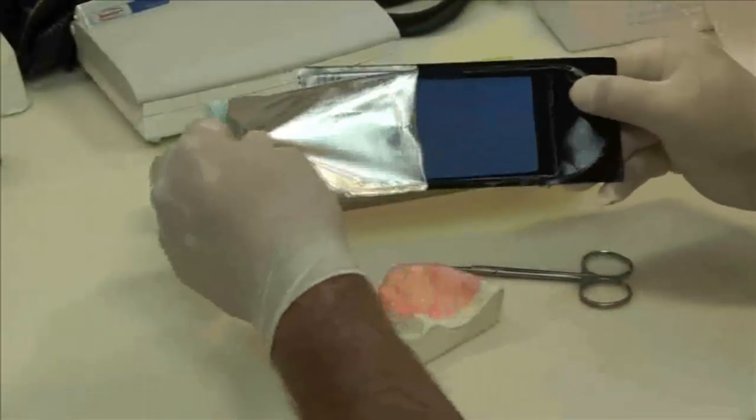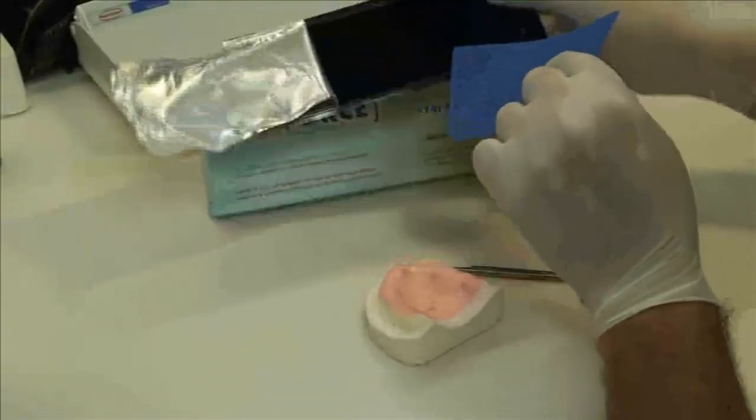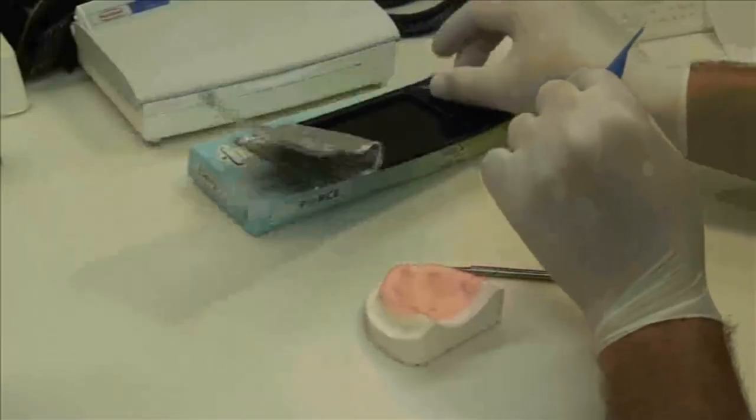Remove the mesh from the package and using standard scissors, cut the quantity needed while keeping the blue protective plastic cover in place.